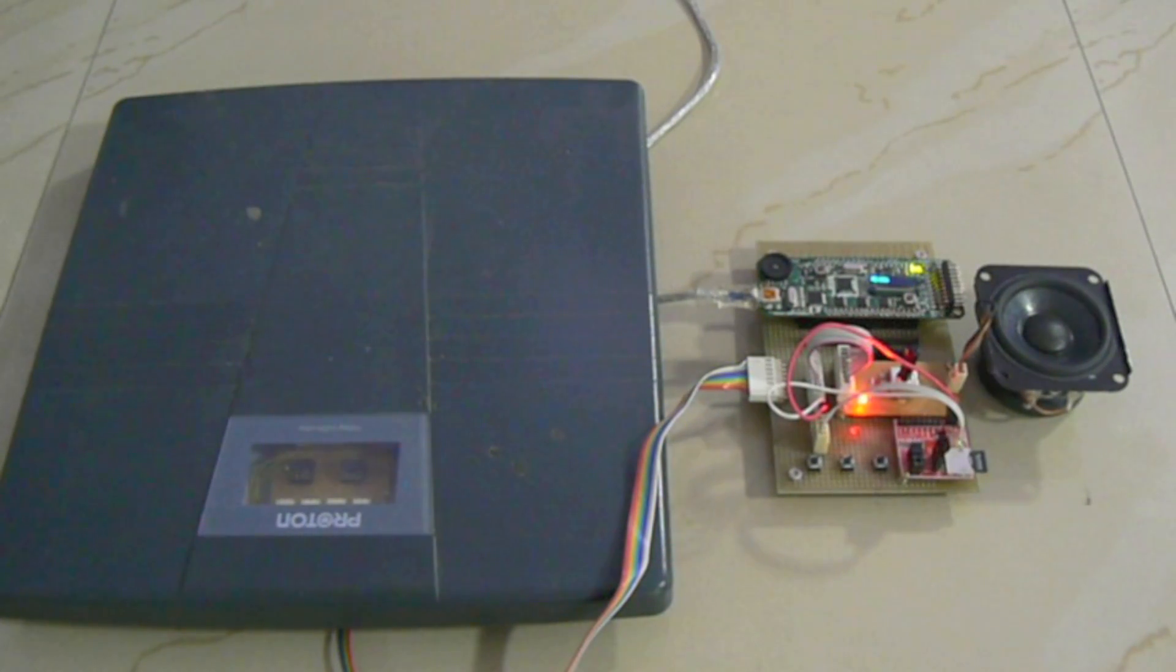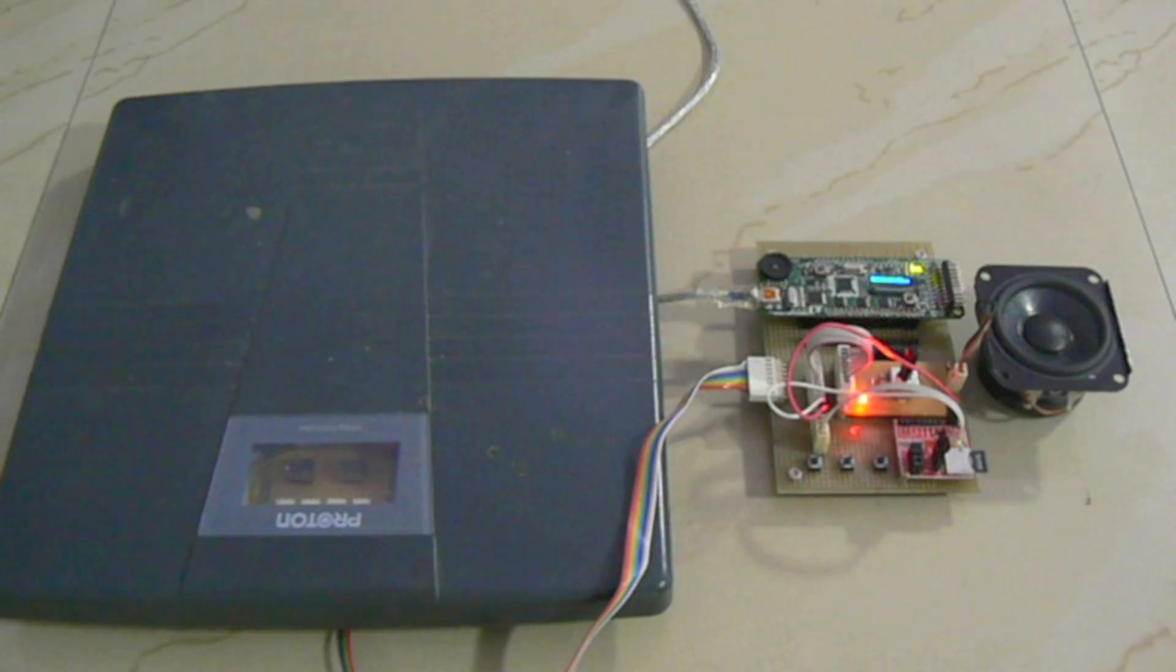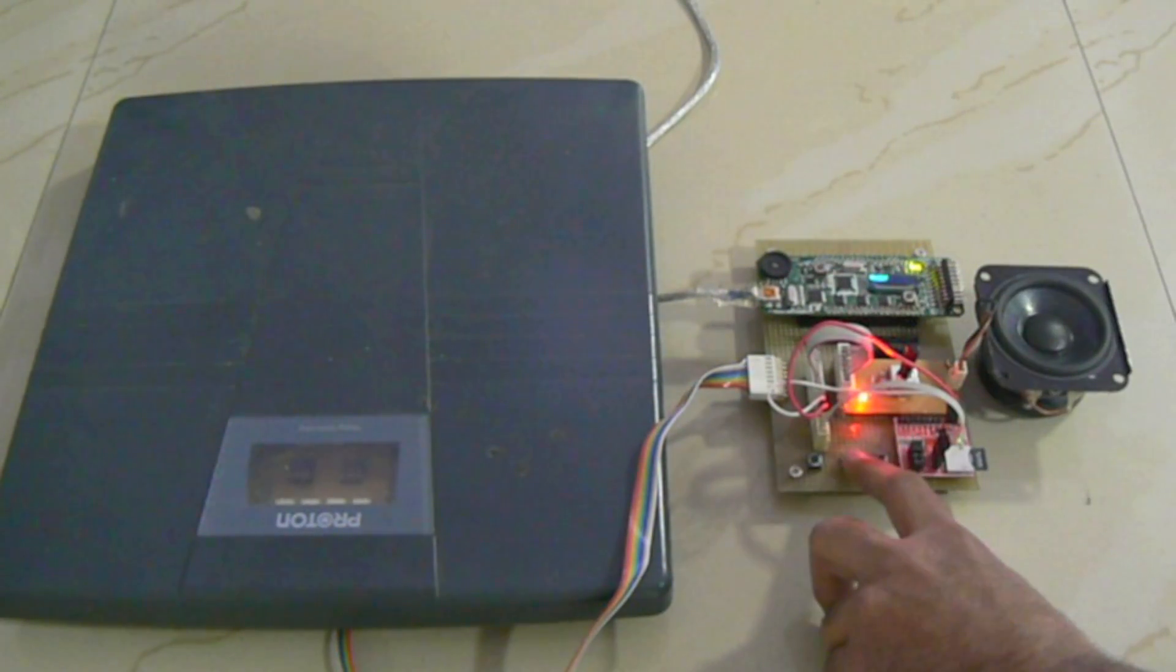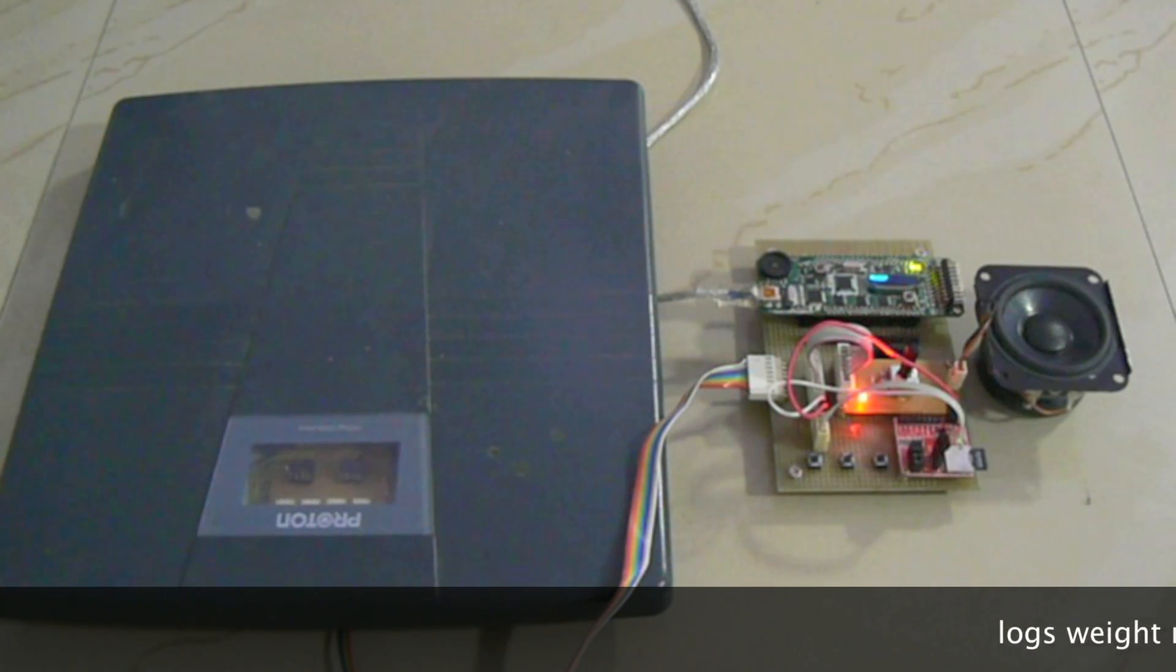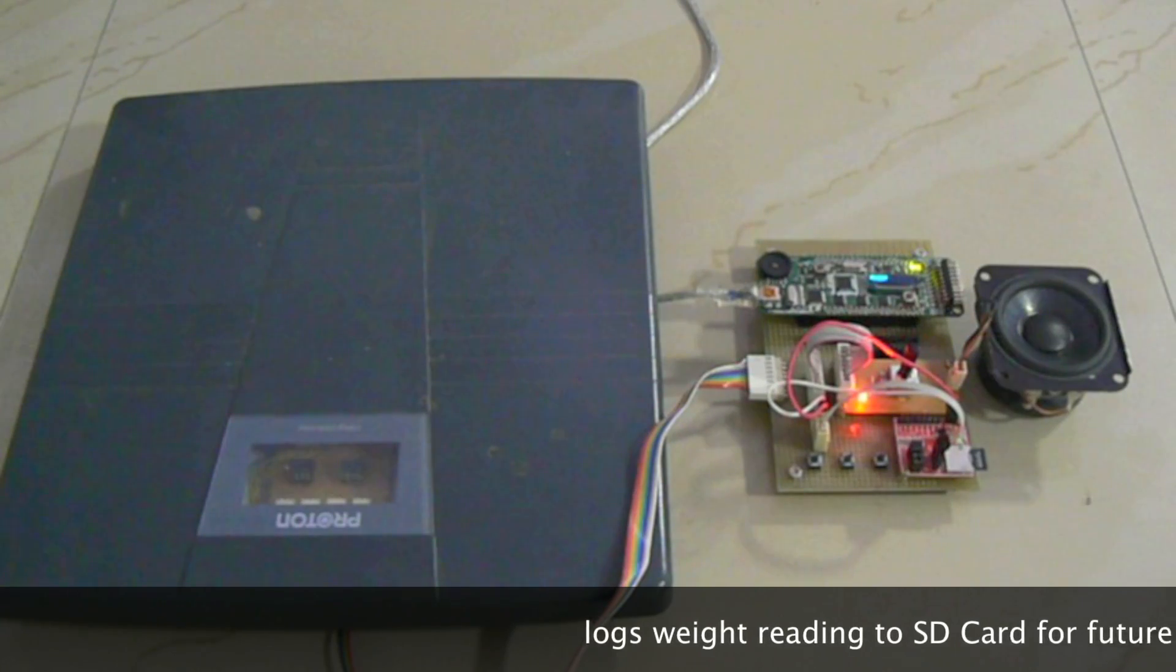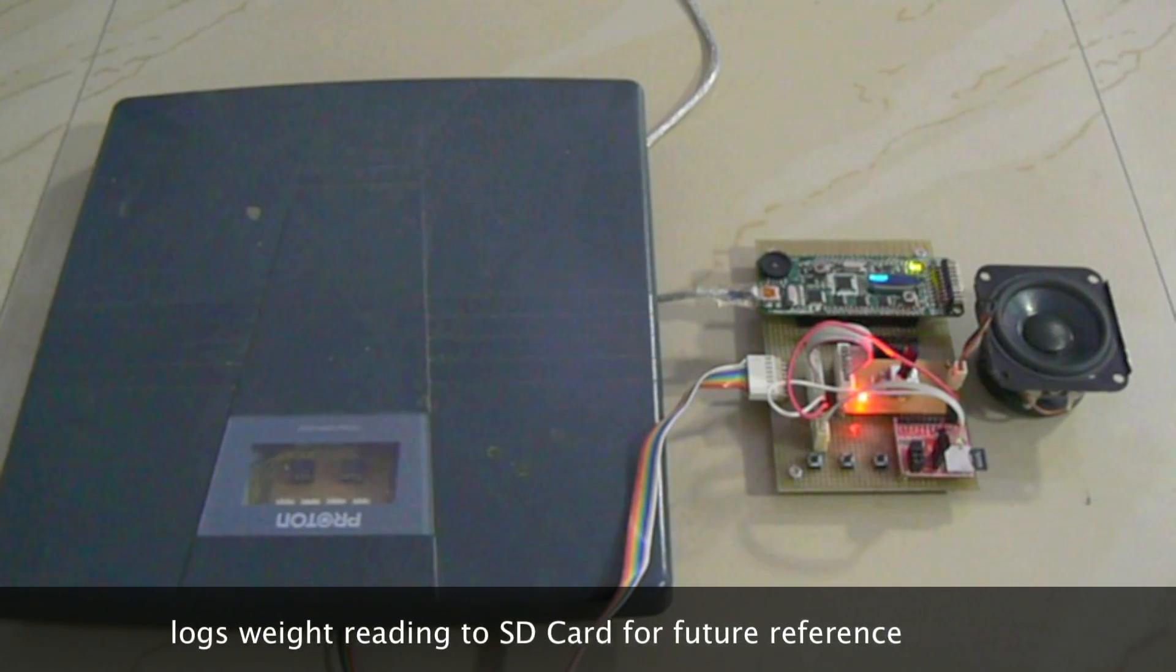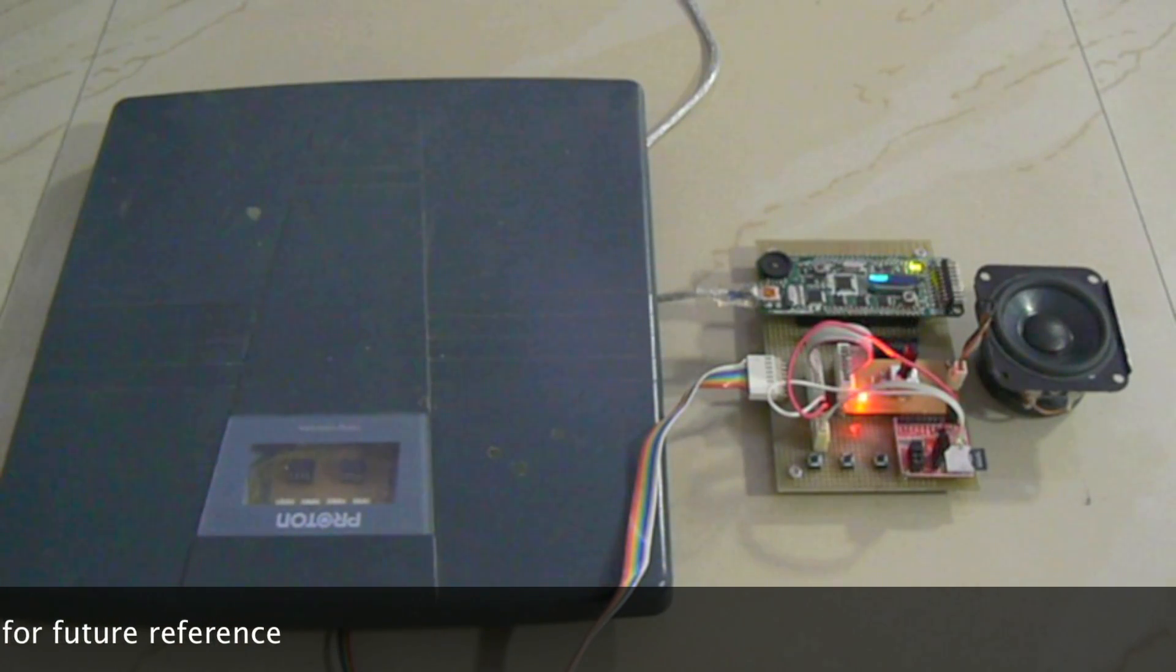Pressing the centermost button toggles the logging of data. By default, logging is disabled. When the user presses it and then stands on the scale, apart from weight being read out in the user selected language, it is also logged onto the SD card. The log data is stored in a text file log.txt which can be read by most operating systems supporting the FAT file format.